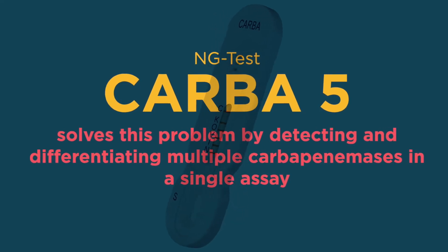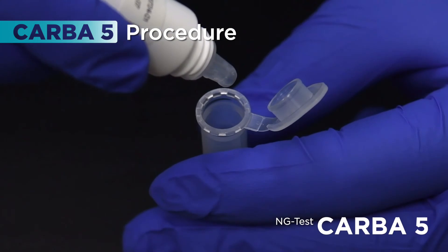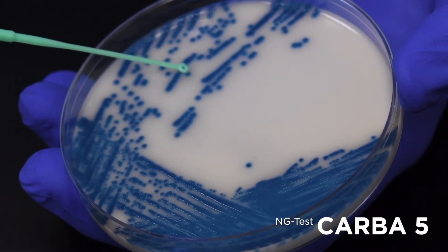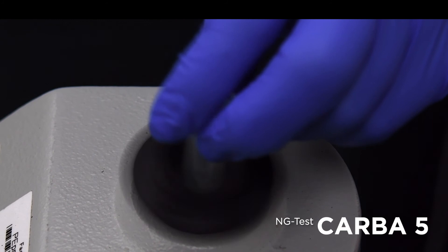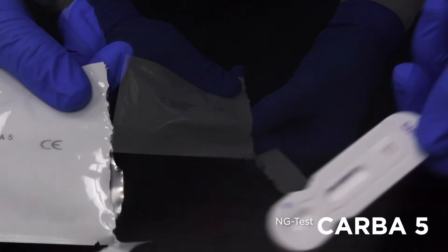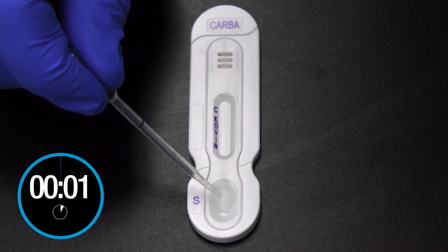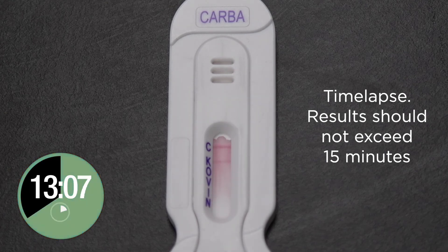NG-Test CARBA-5 solves this problem by detecting and differentiating multiple carbapenemases in a single assay. To use: add five drops of extraction buffer to the Eppendorf tube. Using a one-microliter loop, touch three distinct colonies and inoculate the Eppendorf tube with buffer. Vortex until the suspension is homogenous — this is important to ensure that the cells have lysed. Open the mylar pouch containing the NG-Test CARBA-5 lateral flow device. Using the supplied transfer pipette, draw the sample to the 100-microliter black line, dispense into the sample well labeled S, and start your timer. Allow the sample to diffuse along the test strip.